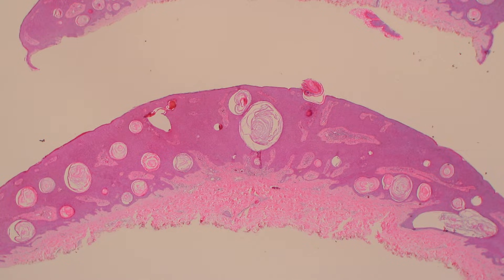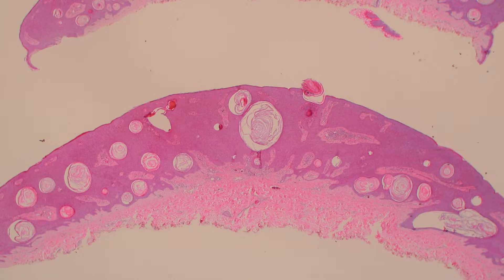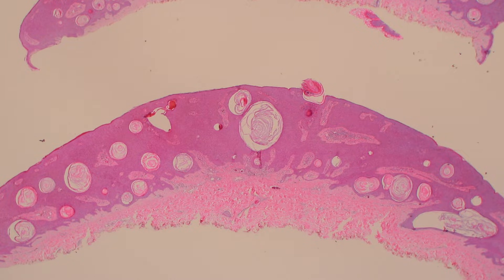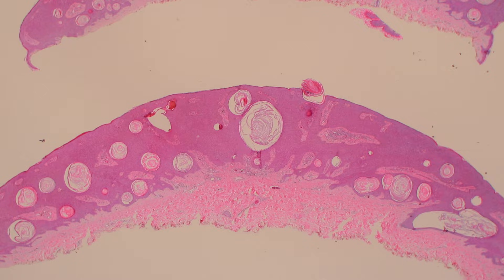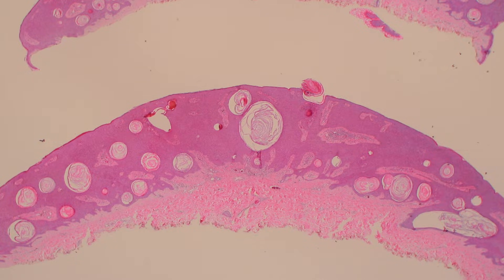Hi, I'm Dr. Jared Gardner and today I'm going to do a little video about how to tell the difference between the horn pseudocysts of seborrheic keratosis and keratin pearls which are seen in squamous cell carcinoma.